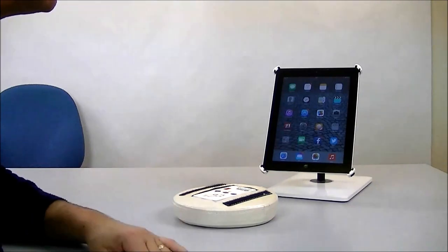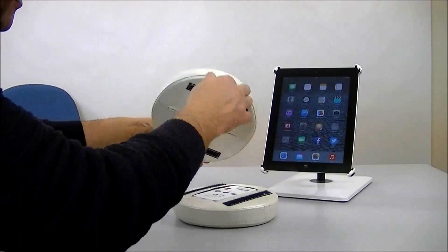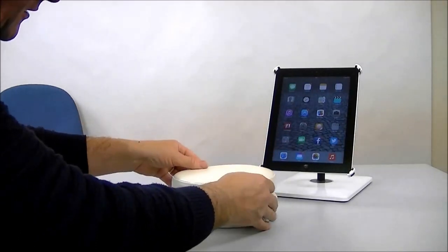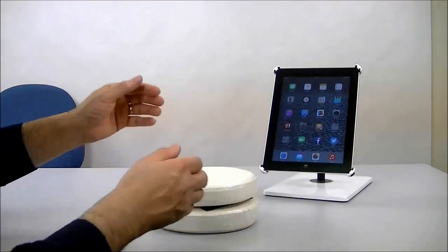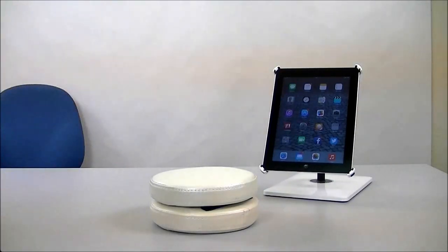The iPad is set to auto scan, so literally this switch is all I need. If I put it back together using the Velcro like that, just tapping it will wake up the iPad and begin the scanning process.